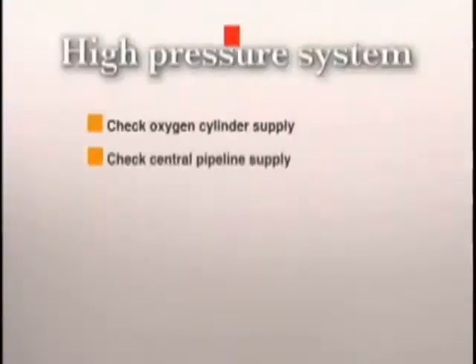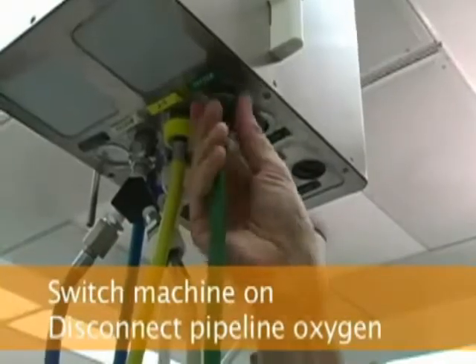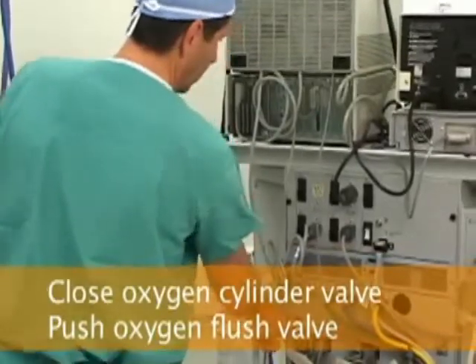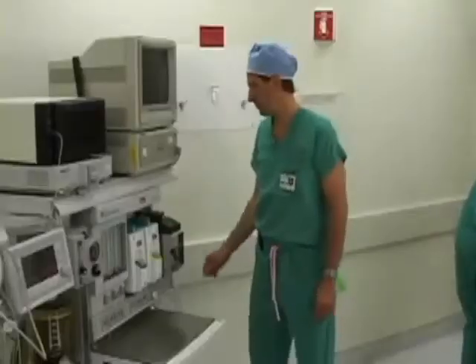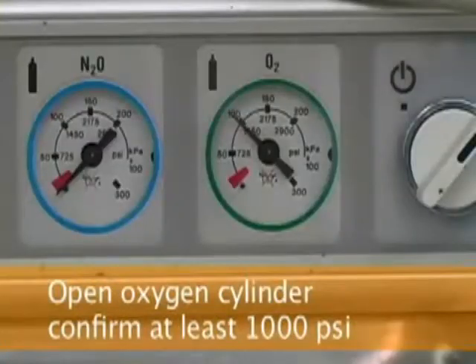Next, you will check the high pressure system by testing the oxygen cylinder supply and the central pipeline oxygen supply. Start by turning the machine master switch to the on position and disconnect the oxygen hose from the central pipeline supply. Close the oxygen tank valve and push the oxygen flush valve to bleed oxygen from the system. At this point, you should hear and see the low oxygen pressure alarm. Open the oxygen cylinder and verify that the oxygen cylinder pressure is at least 1000 psi.